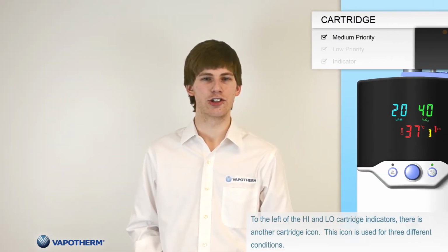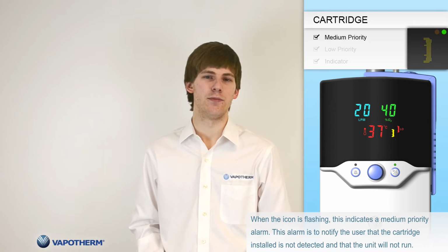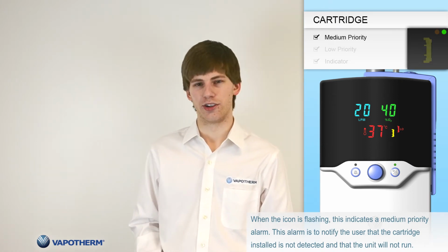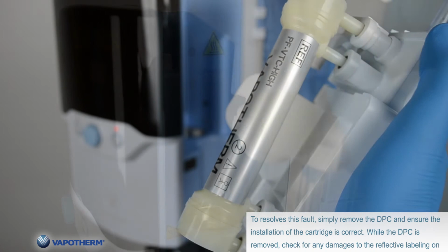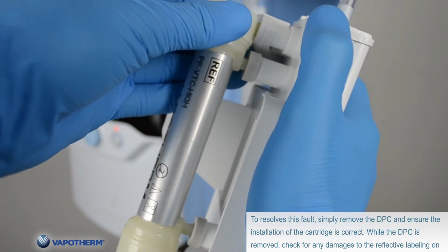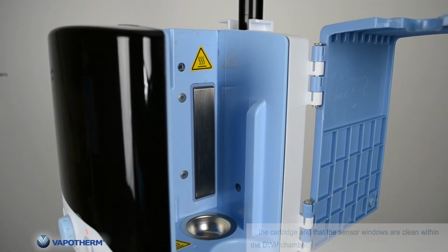To the left of the high and low cartridge indicators, there is a cartridge icon. This icon is used for 3 different conditions. When the icon is flashing, this indicates a medium priority alarm. This alarm is to notify the user that the cartridge installed is not detected and that the unit will not run. To resolve this fault, simply remove the DPC and ensure the installation of the cartridge is correct. While the DPC is removed, check for any damages to the reflective labeling on the cartridge and that the sensor windows are clean within the DWP chamber.